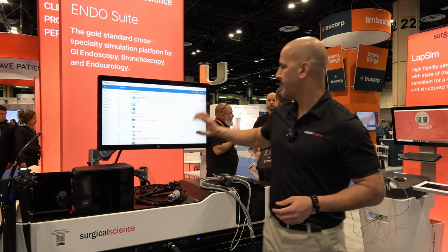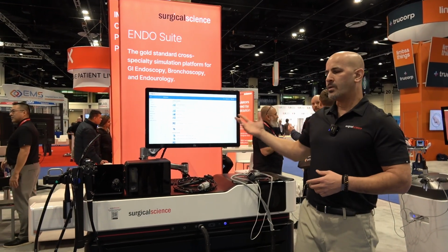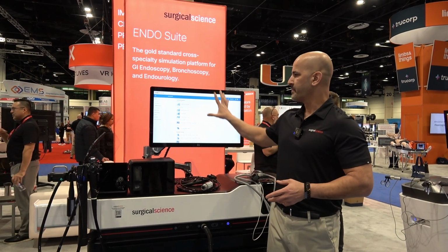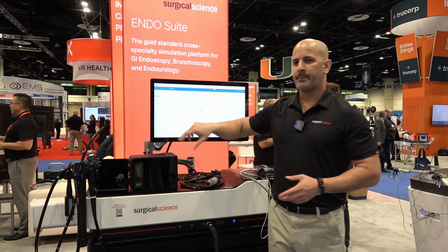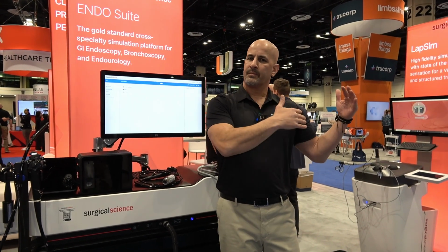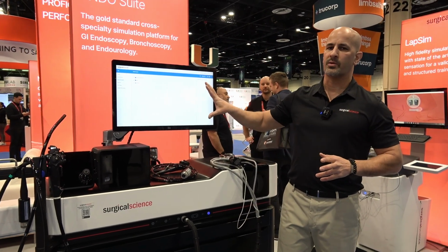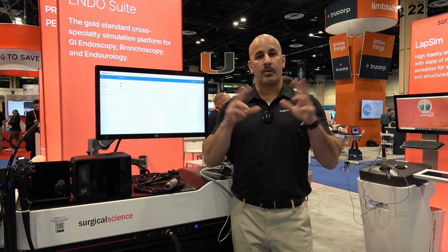The Mentor Learn itself is a product on its own, which allows sim centers, managers and educators to control a large number of users on the simulator through the user interface. Through the users and groups, you can log in your students and group them based on their level, whether they're first year, second year, third year, nurses, research techs, it doesn't matter. And of course, this is how we control. Every group will be assigned their own training programs and their own homework.